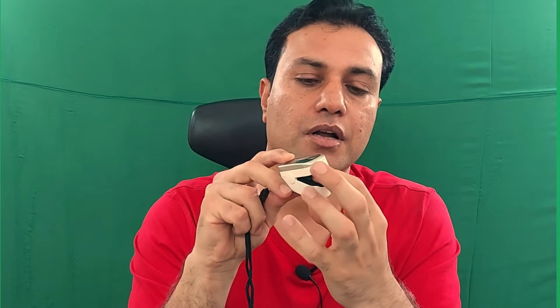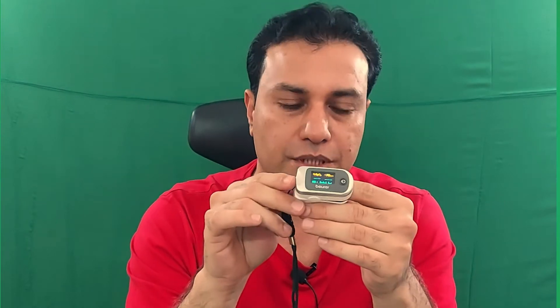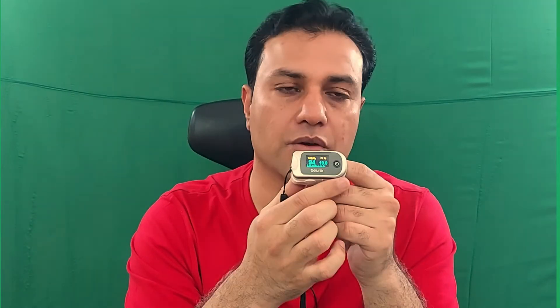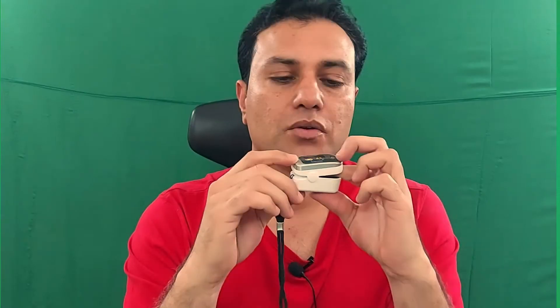Keep the finger here and this will start measuring blood oxygen saturation. You can also measure the blood perfusion index by pressing this button. The perfusion index is the ratio of the pulsatile blood flow to the non-pulsatile blood in peripheral tissues.